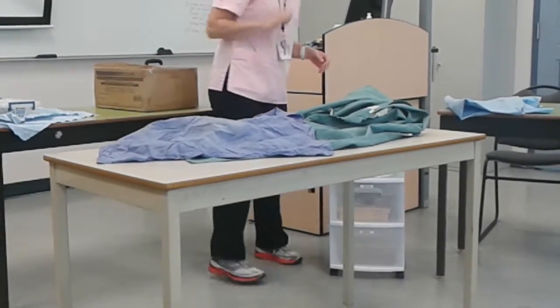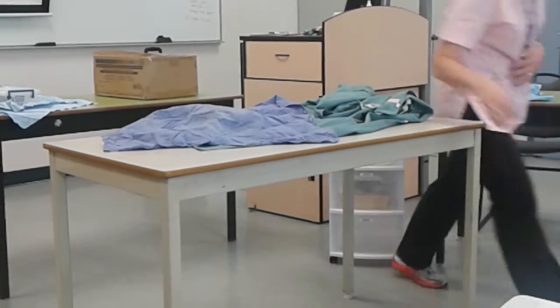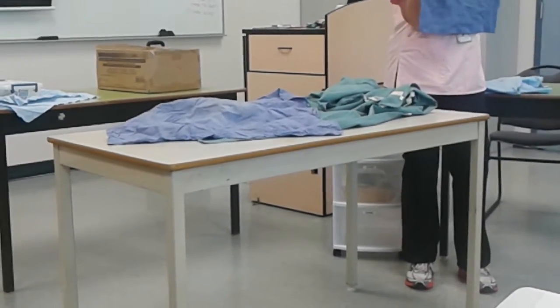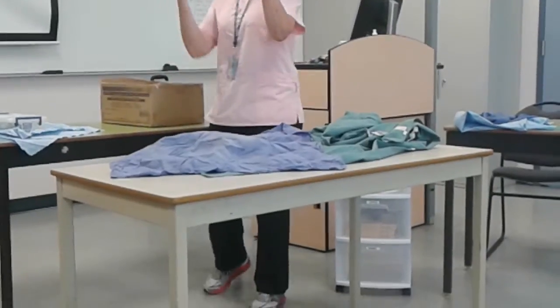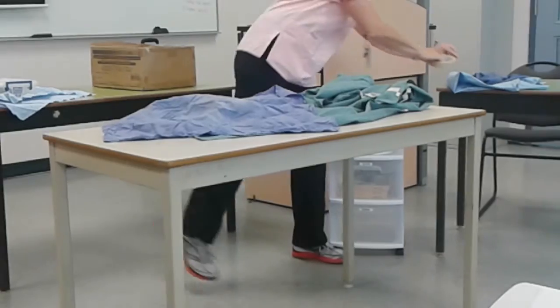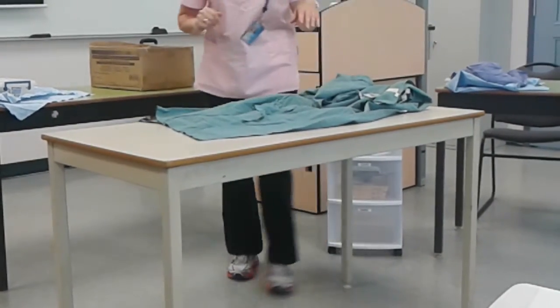The other thing that Sheridan wants animal care students to include in their gown pack is a surgical towel, so that as soon as the vet's in there, they're able to dry their hands off. And then, of course, what we taught you in class — I need one of these and I need some of my tape. That's all I need for doing a gown, so I've got all my stuff close by to me. Let's start with the gown.